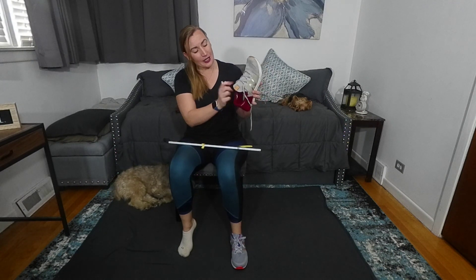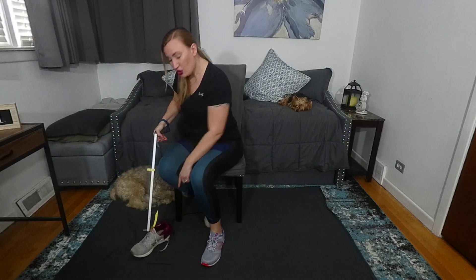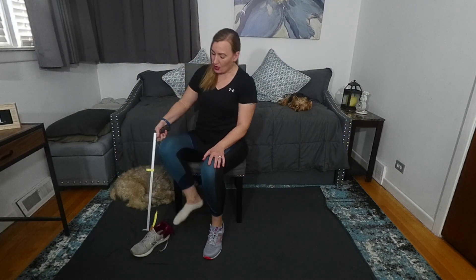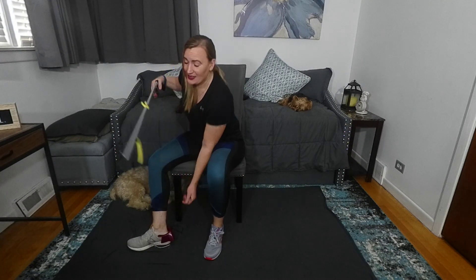A full demonstration for those with cloth shoelaces. Put the foot funnel inside the shoe. Now we need to keep that tongue out of the way, so use your reacher to grab the tongue. Place the shoe on the ground and keep the strings out of the way. Hold that tongue up while you put your toe in, then the heel. Reach down or grab those strings, pull the foot funnel out. Now you can tie your shoes.